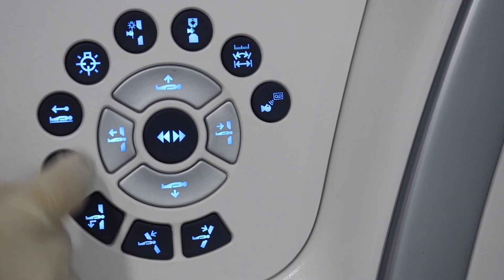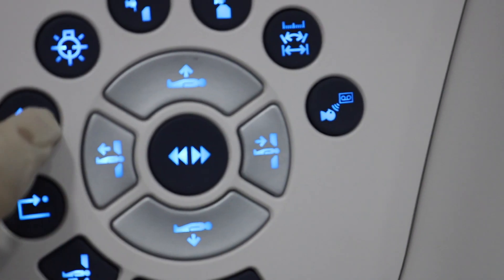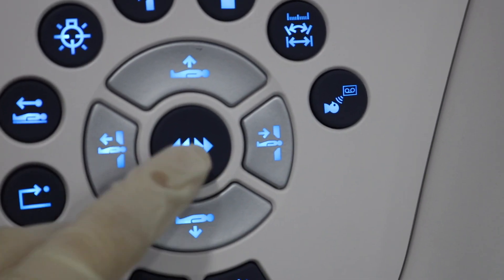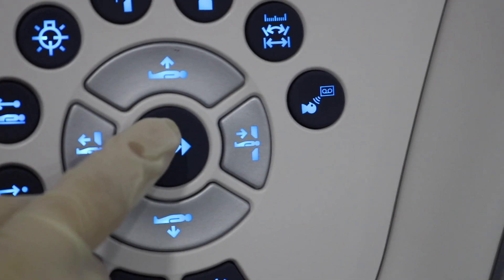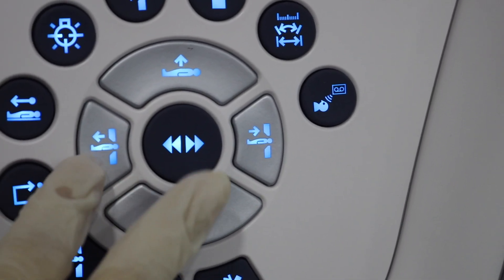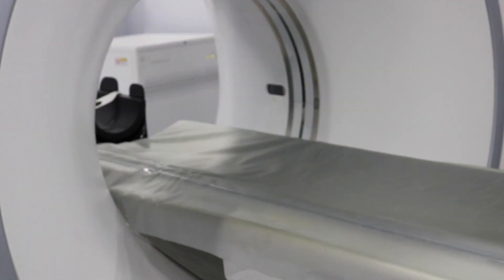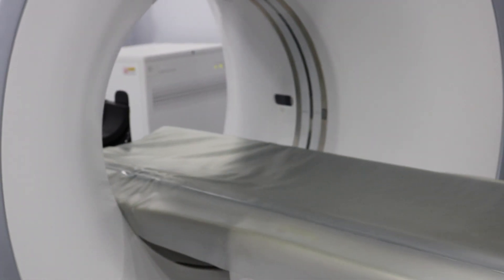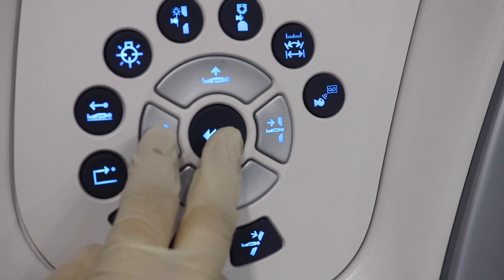These buttons are also used to control the patient table movement. The middle button is used to increase the speed of the movement. If you press it with any of these buttons — for example, with this button — the table moves in very fast, and if it's pressed with this button, the table moves out even faster. If pressed simultaneously with this button, the table moves down faster and vice versa.